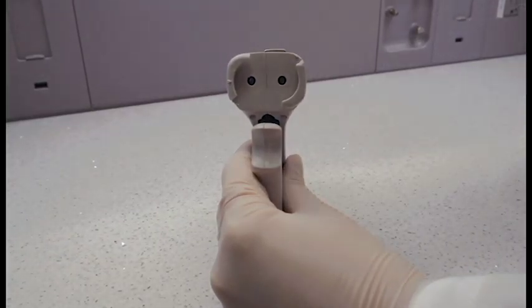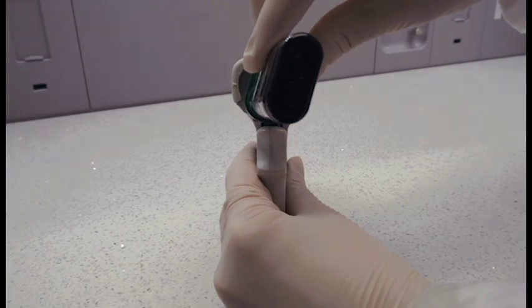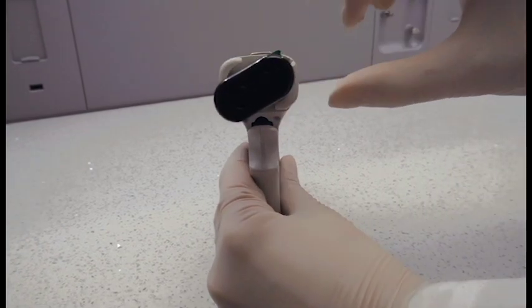Next, take the cartridge, pointing north and south, and rotate it to the right until it locks in place.